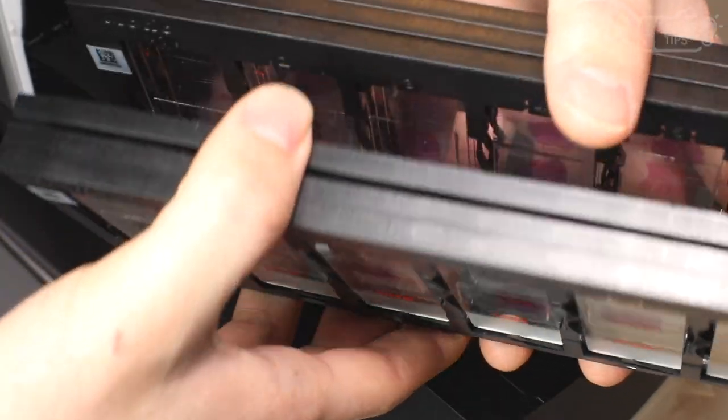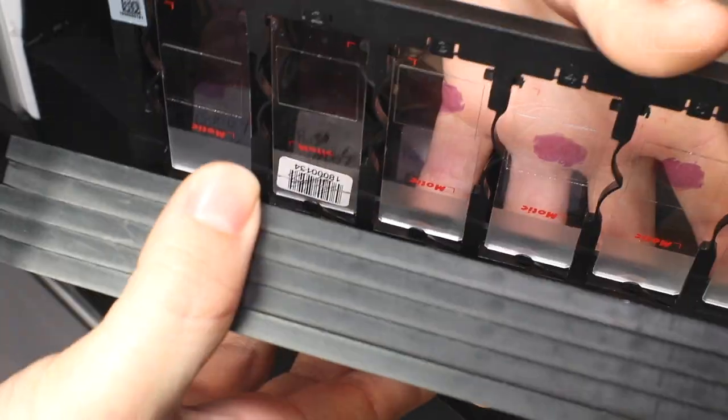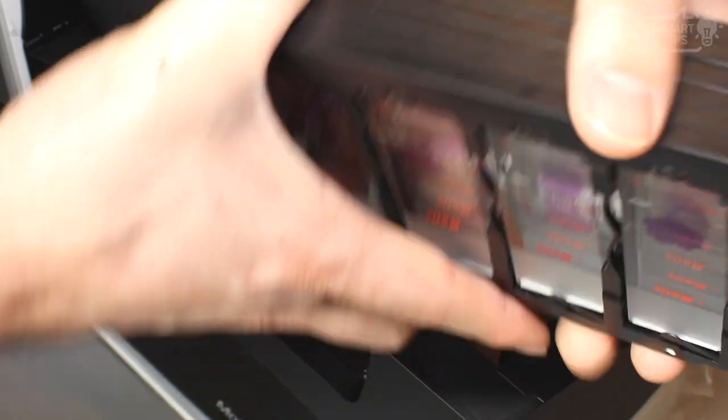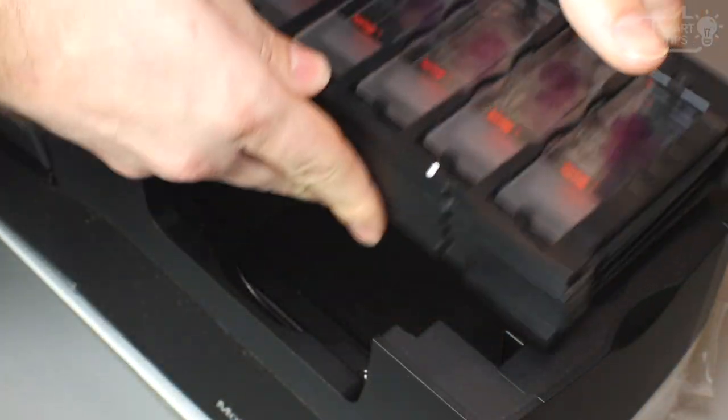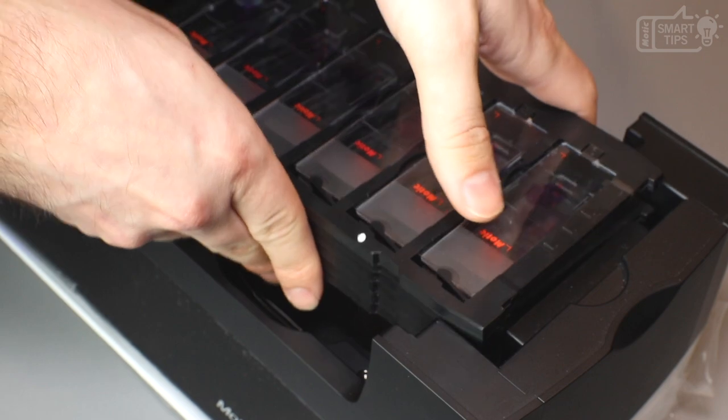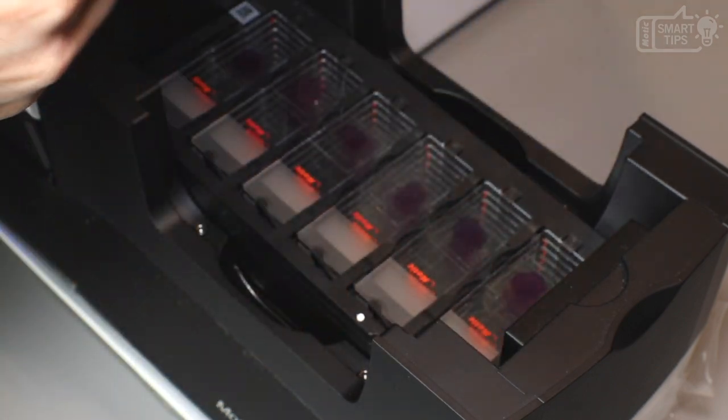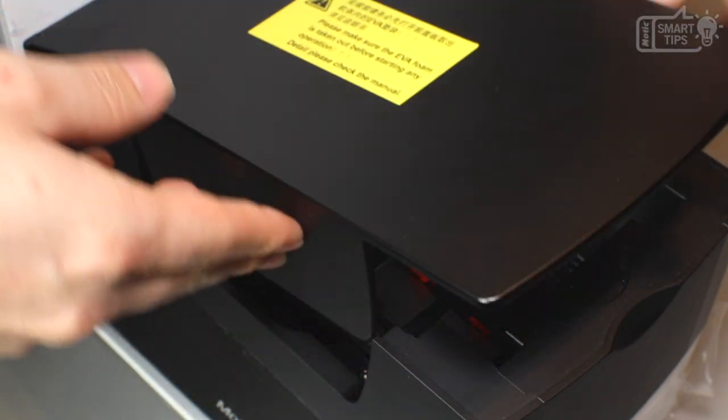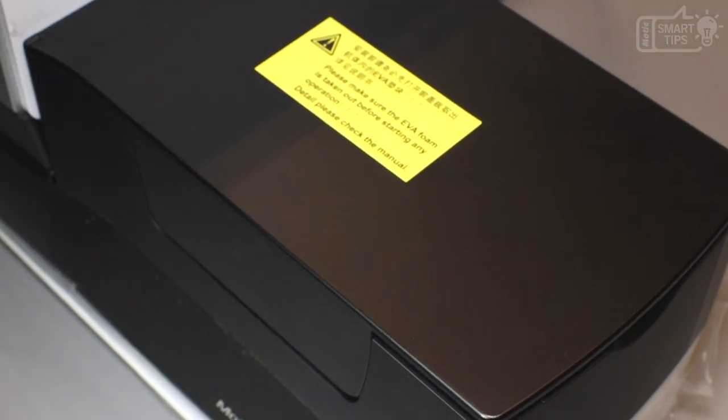A very good feature is that you are allowed to load multiple slides while it is scanning. So it would be on the go. Just load them like this, just like before. And you can even close the lid. And that would be it.